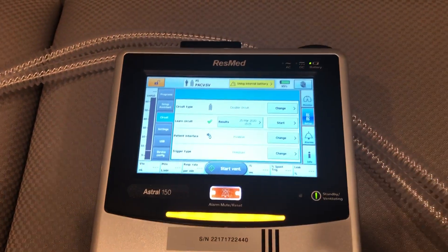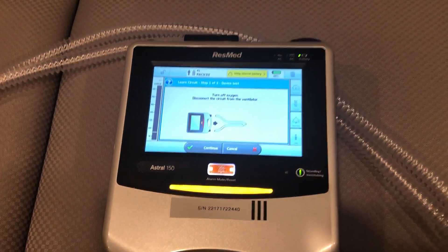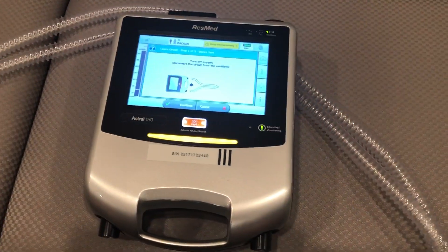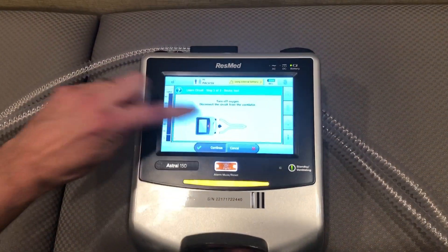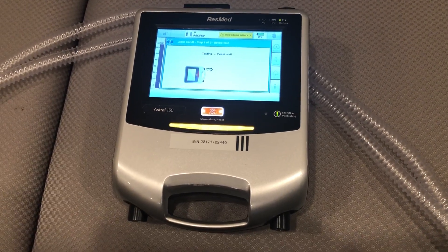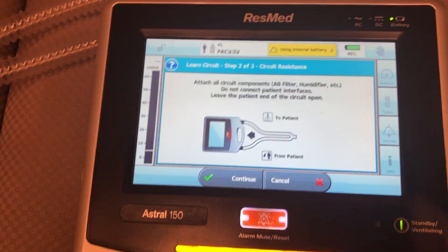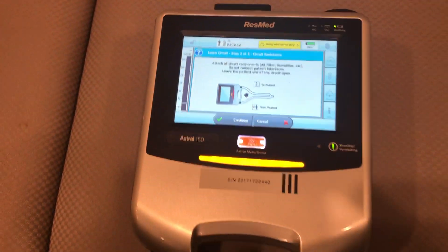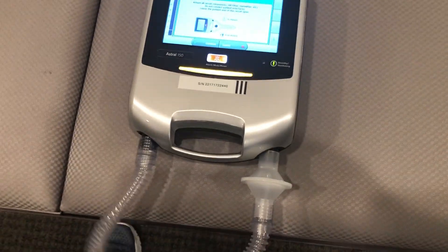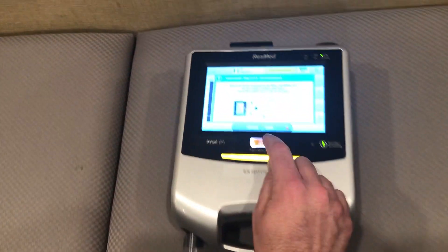Now I need to do a learned circuit with this unit. I'm going to press start and follow the prompts: turn off oxygen, disconnect the circuit from the ventilator. We don't have oxygen hooked up and our circuit is not connected. I'll press continue. Now following the prompts, I'm going to connect my inspiratory and expiratory limbs, ensuring that I'm disconnected at the Y, then press continue.